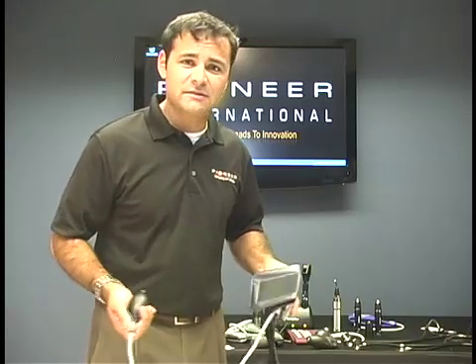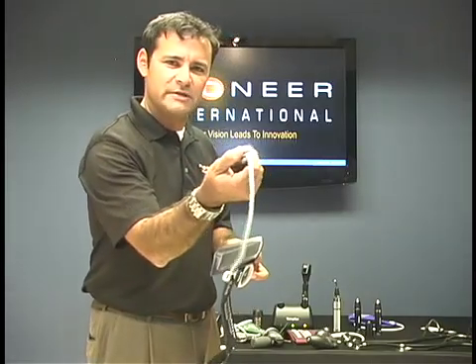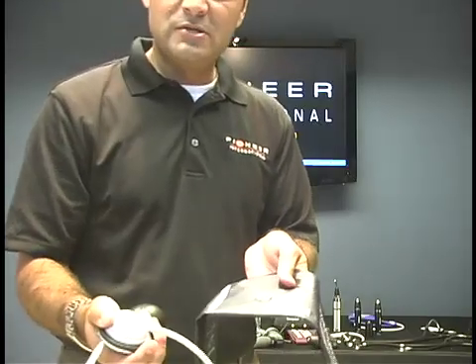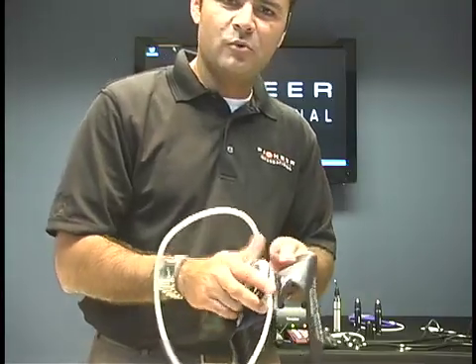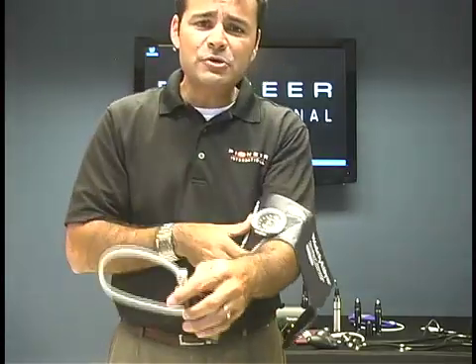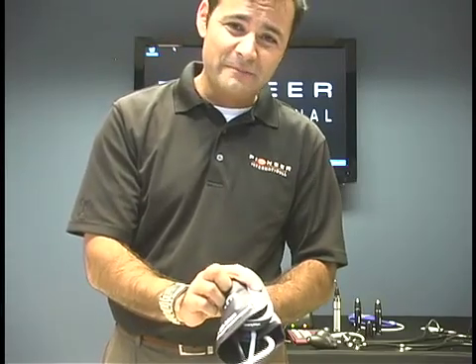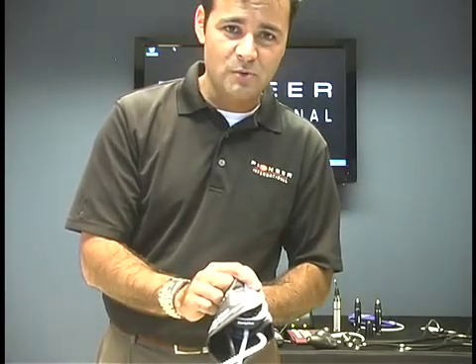Another gauge you've probably seen — you'll see it at your doctor's offices — is one with kind of a blood pressure bulb and a thumb screw release. They do offer this at schools too. The gauge has a calibration check, which is very nice, and it pops off between different-sized cuffs. One thing you need to be aware of when using this: as I put this on my arm and rotate around the patient, the cuff will actually cover your gauge, so that might bother you. Take a peek at that when you're looking at these gauges. The main thing is they all have great warranties while you're in school, so take a look at your gauge.